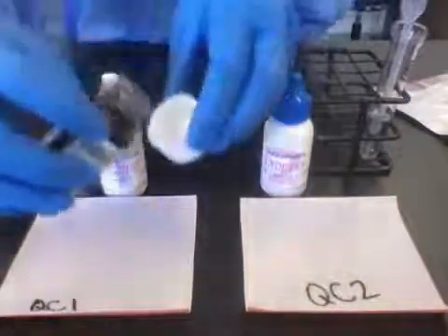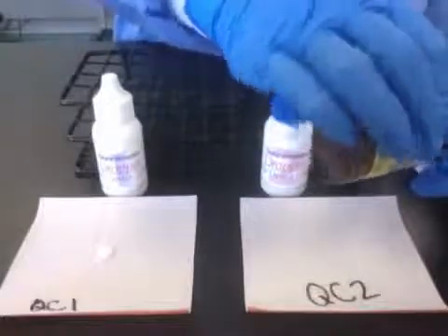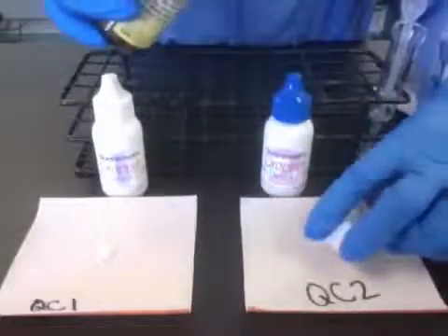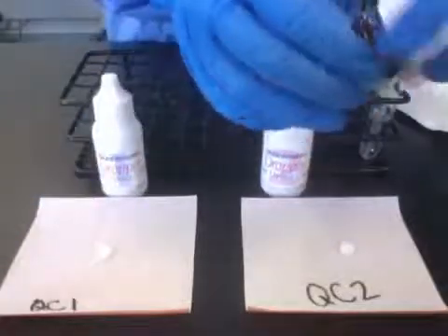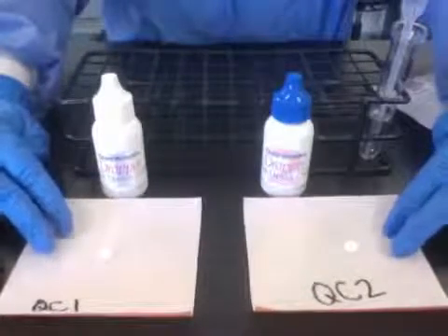Then I'm going to dispense one tablet into the lid and put the tablet onto the paper towel or white absorbent wipe. Sometimes it can be a little tricky getting just one tablet. Do not touch the tablets with your gloves or hands. Always be sure you are doing this test on a surface such as these.